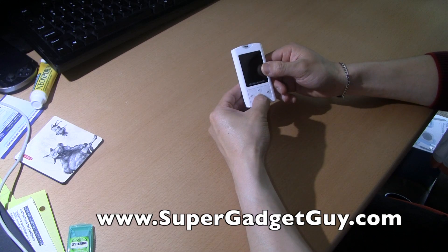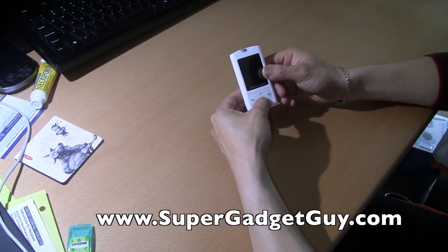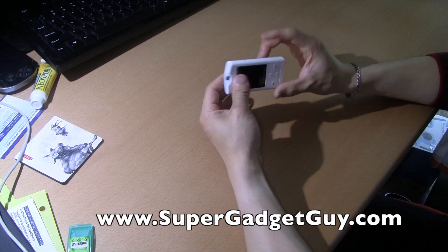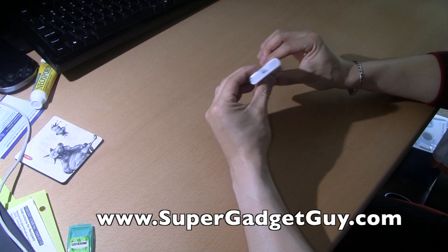The button is not the hardest button to press. The nano meter I have is actually the hardest one, but it's pretty clear. It's not the smallest — it's pretty decent in size in terms of overall dimension, and it's pretty thin.